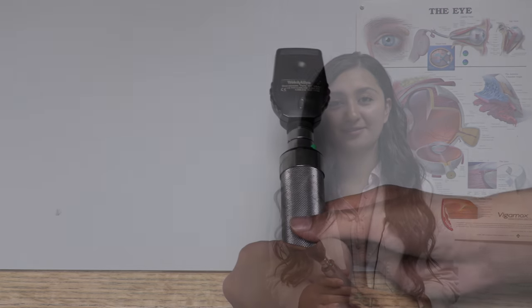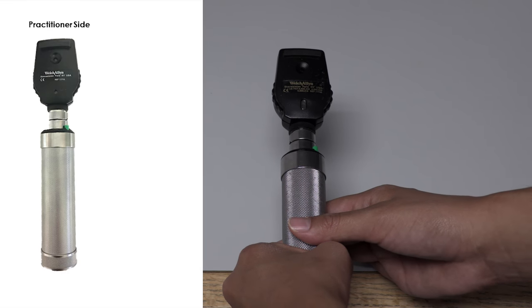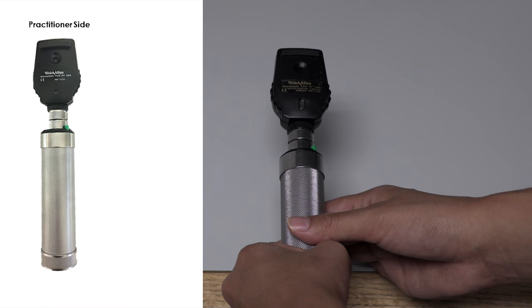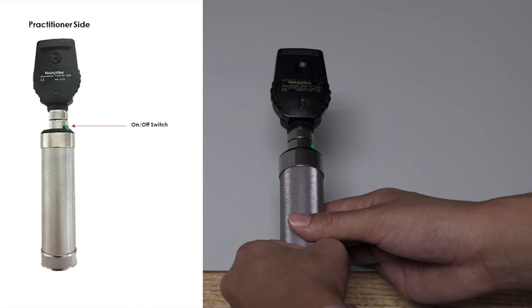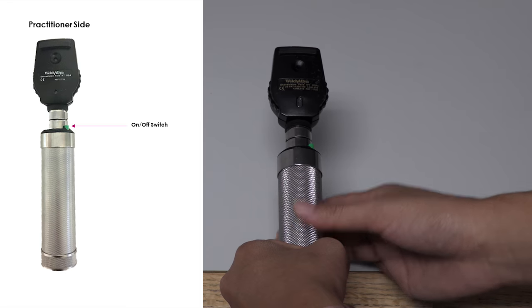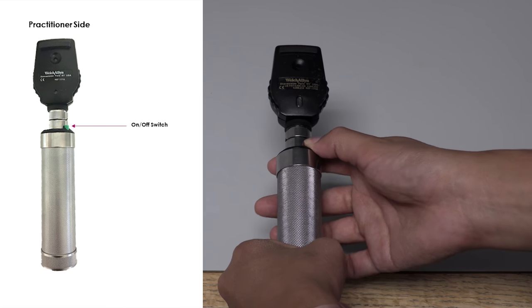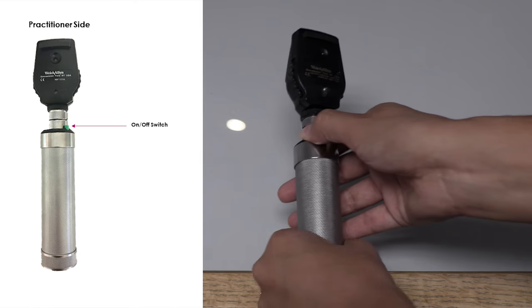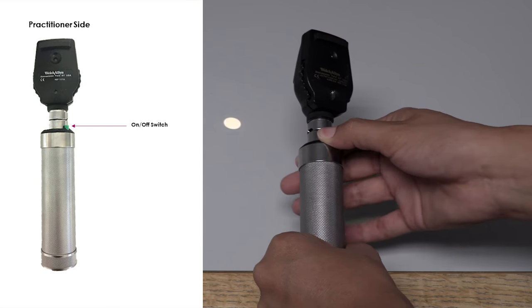In order to use the direct ophthalmoscope correctly, it's important to know the different parts and settings of the instrument. Let's begin by looking at the practitioner side — this is the side that will be facing your eyes. The first thing you're going to want to do is turn on the instrument. To do this, you'll need to depress down on the green button and turn. This is called the rheostat and it controls the brightness of your light.